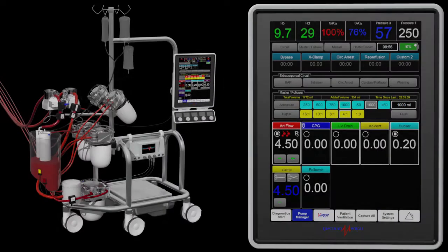The Quantum Safe Flow System uses two level sensors, a venous flow sensor, arterial flow sensors, and the Quantum Workstation to help maintain a safe venous reservoir fluid level.